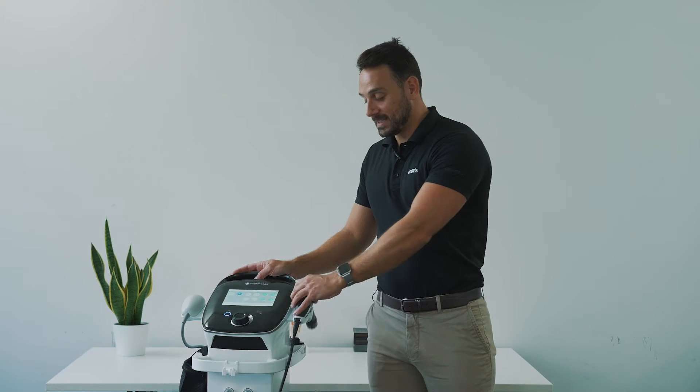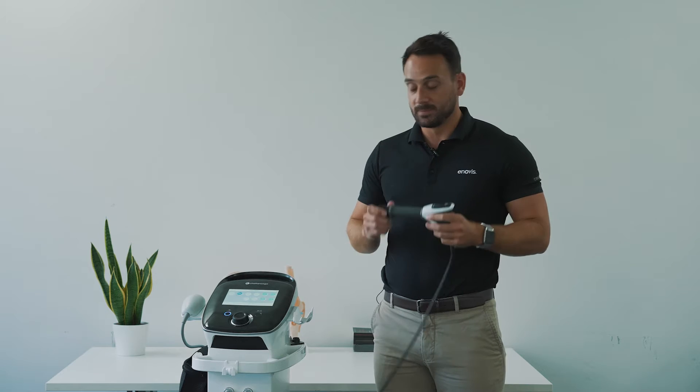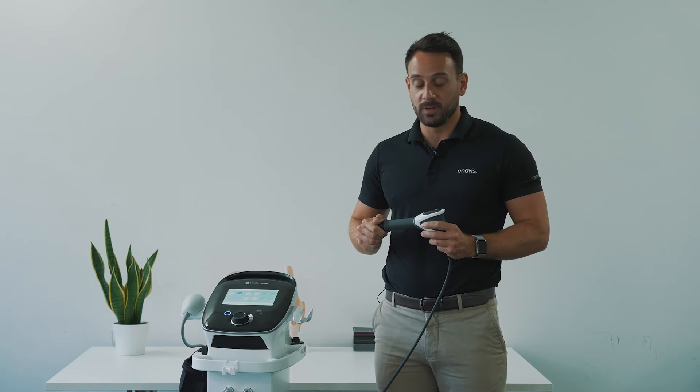Today we're going to be talking about the Intellect RPW2 and how to perform a revision of the Falcon handpiece. The Intellect RPW2 is our flagship RPW shockwave device capable of treating from 0.3 to 5.0 bar pressure, 1 to 21 hertz. The unit has comfort mode built into it to aid your patient's comfort during treatment.